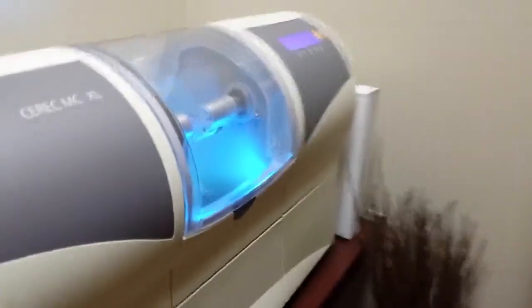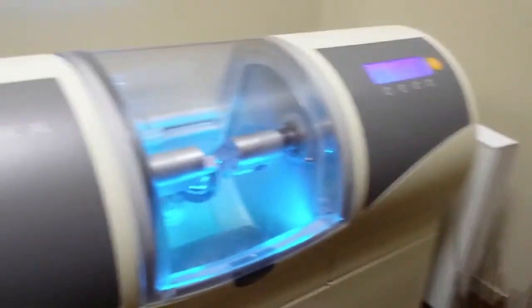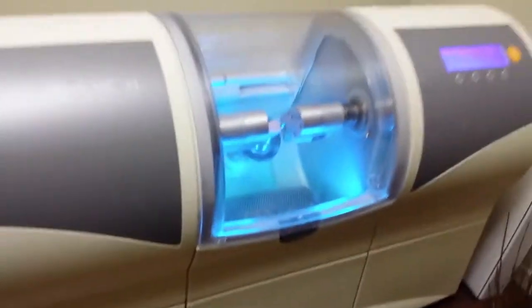Eight minutes. This is my bigger machine. I actually have an older machine that's a slower one, but this is like the Ferrari of them. It's fast.